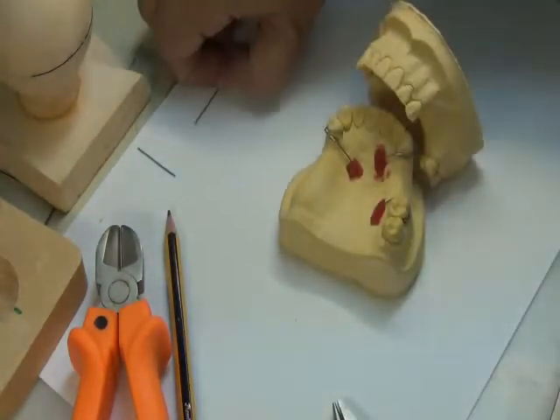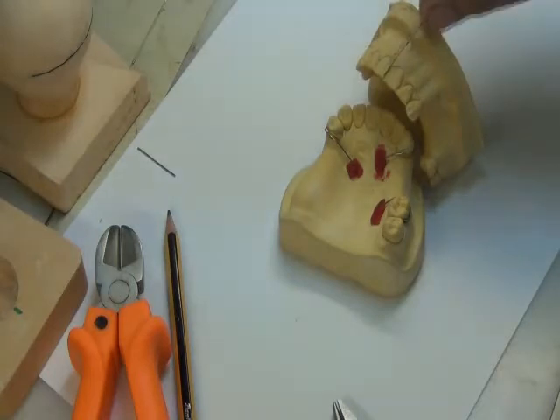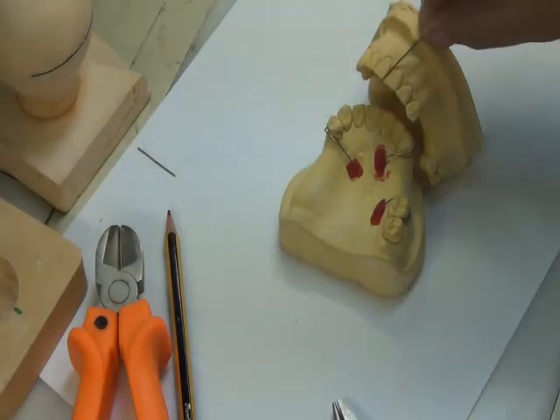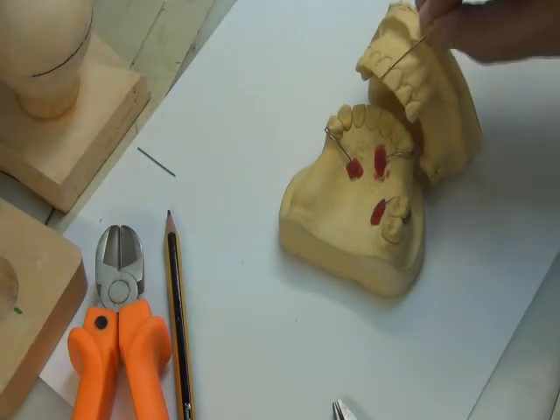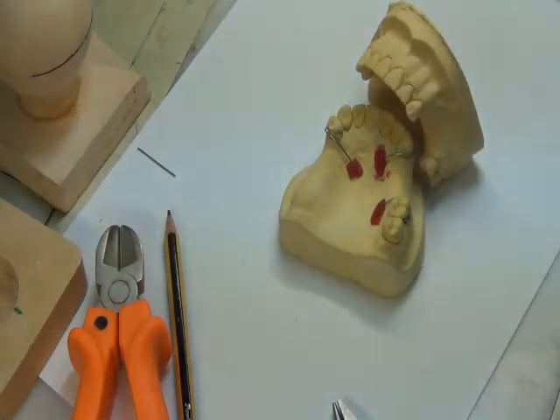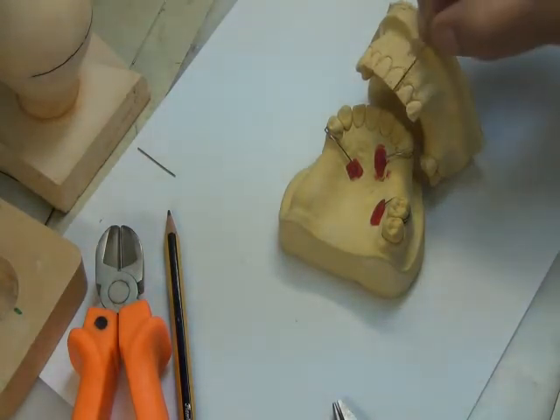And how do I know the shape, by the way? If I run 2 lines, one on the mesial surface and one on the distal surface, and then a line joining here, it will tell me what type of tooth this is. So look at the lines. The mesial outline is like this. The distal outline is almost like this. So I would call this tapered. Okay? It's called square when they are both parallel.